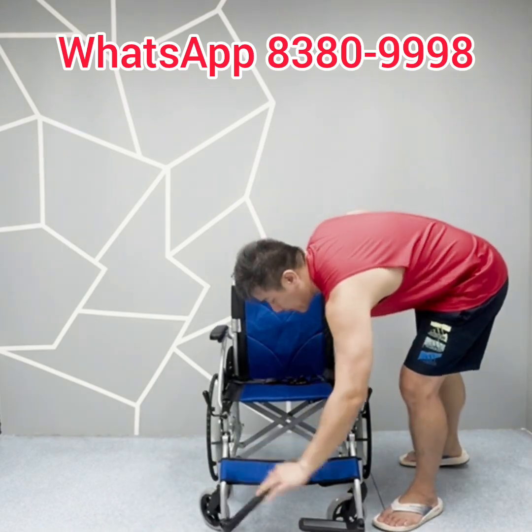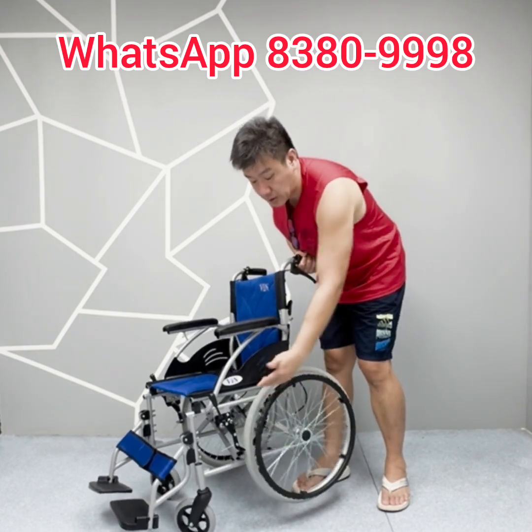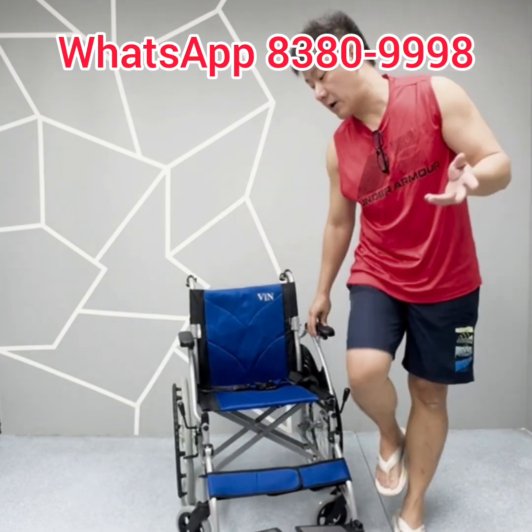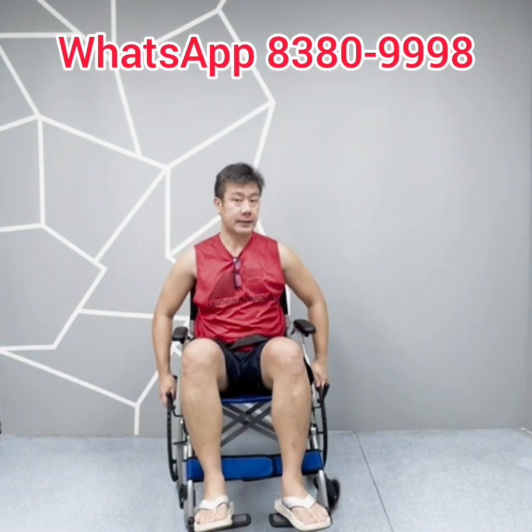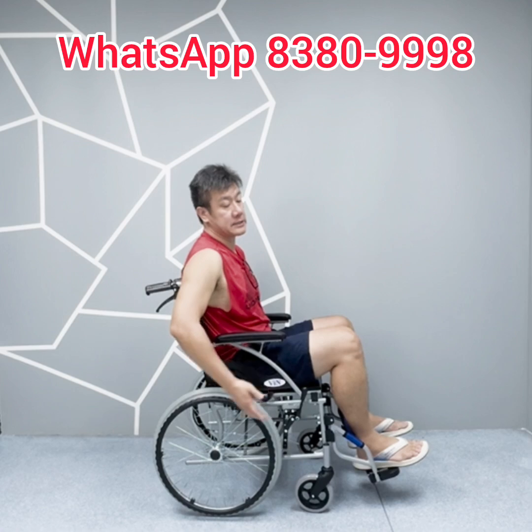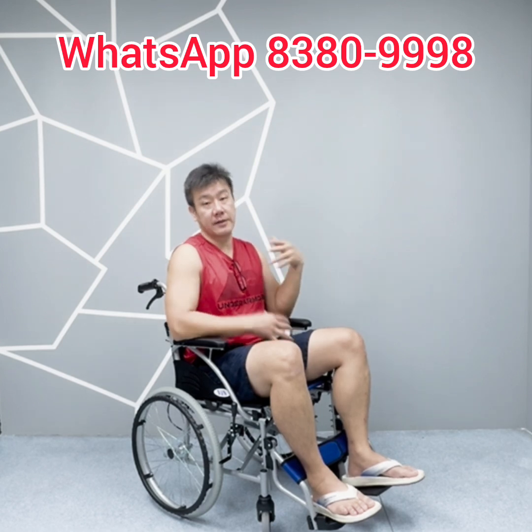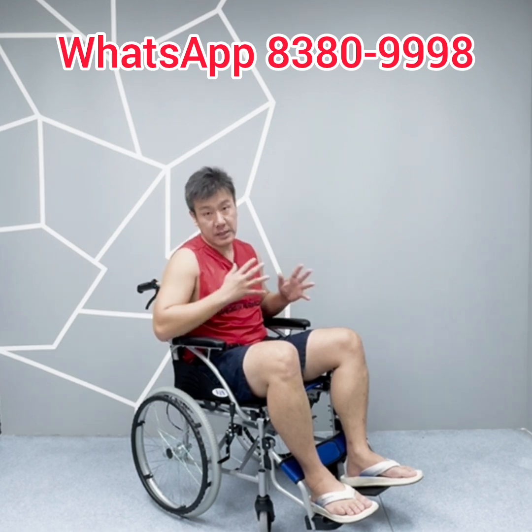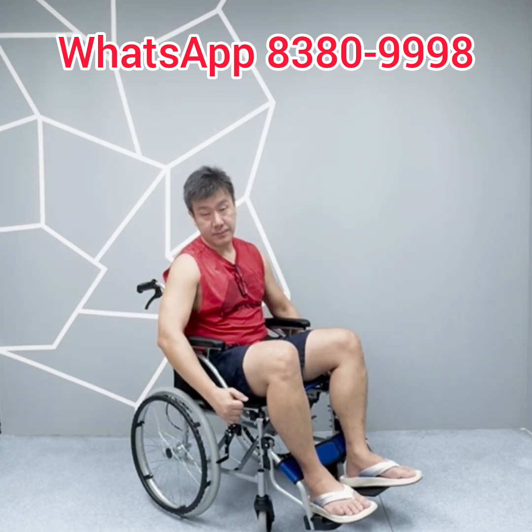This is a self-propelled wheelchair. The benefit of self-propelled is that the bigger rear wheels have a propelling ring at the side, allowing the user to propel themselves. This gives them more freedom and they will not be stuck in one place when the helper is away getting medication, food, or going to the restroom. We must care not only about the physical but also the mental — when users cannot maneuver themselves with people walking by, it is very stressful mentally. They can also apply the attendant brake at the side.